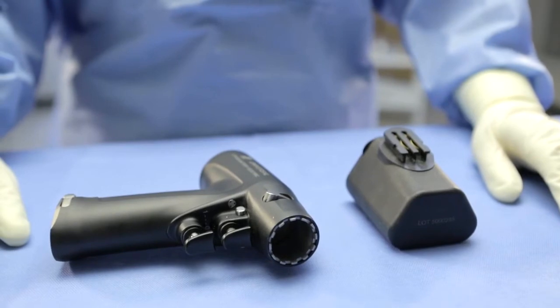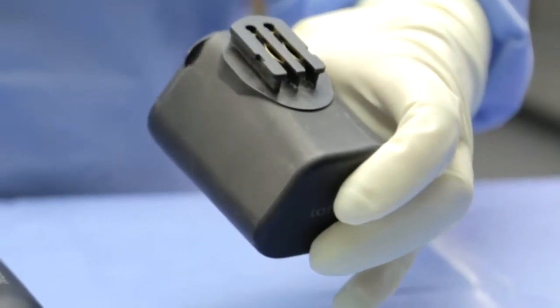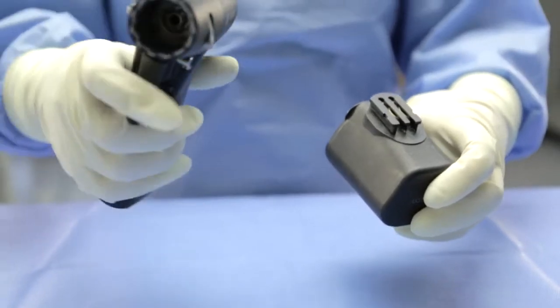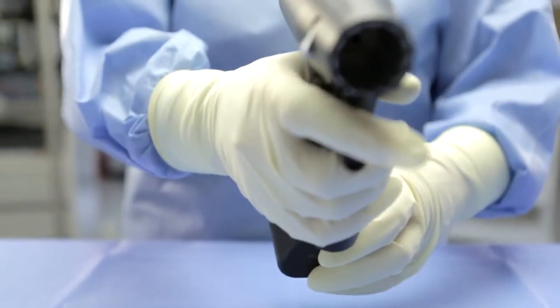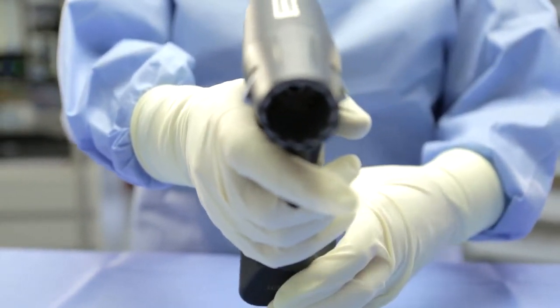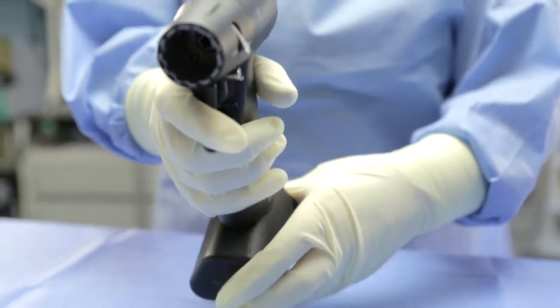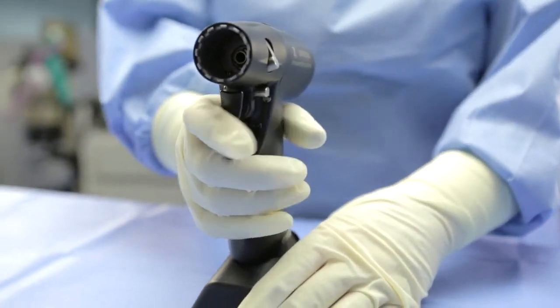If you are right-hand dominant, grasp the battery with your left hand, placing your thumb behind the battery and your fingers across the front of the battery to hold it in place. Grasp the handpiece by the handle as if you are holding it for normal operation. Place the handpiece in front of the battery so the bottom of the handpiece is resting on top of the battery. Using a slightly upward motion, pull back on the handpiece to engage the connection opening to the battery connection tracks. Continue to pull back until you hear an audible click. The battery is now locked into place.